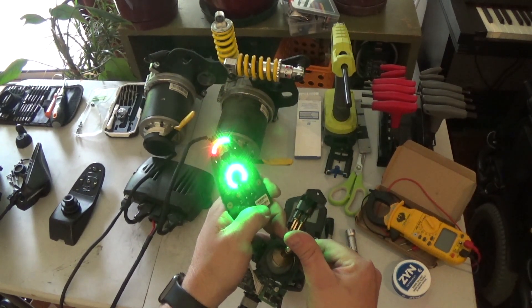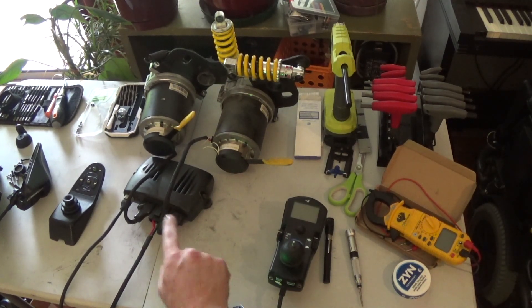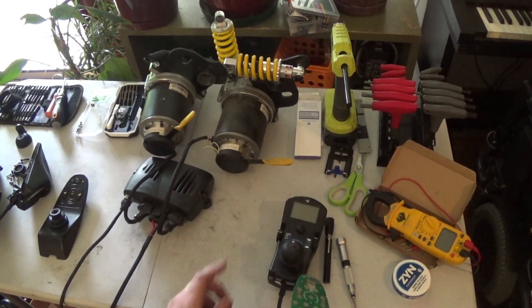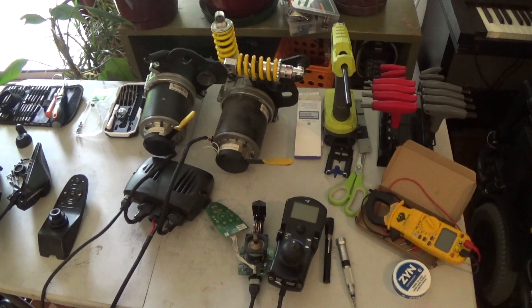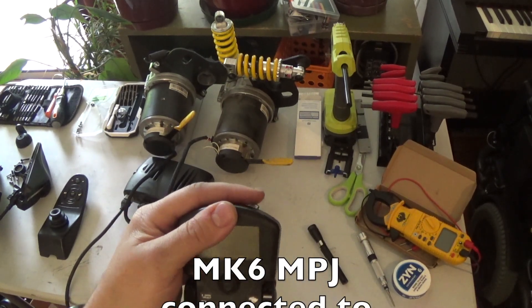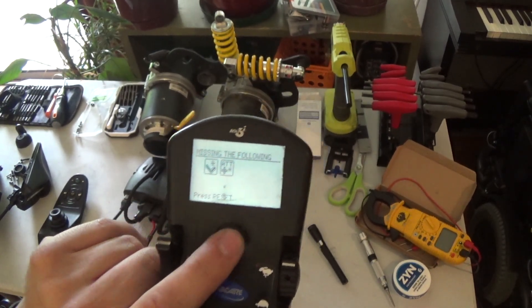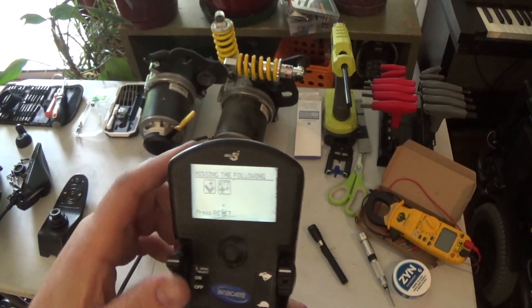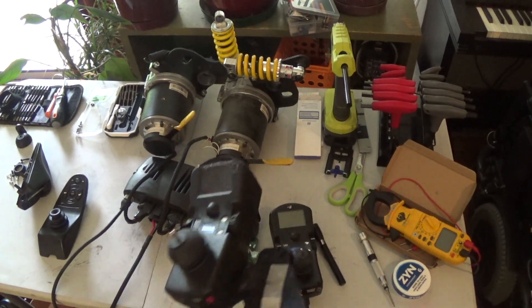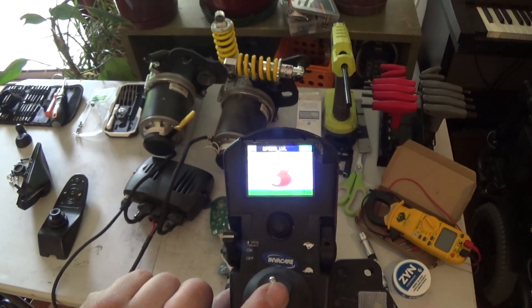It works! So the MK6 controller without accessories will work with the MK5 Shark-style joystick. Next, the grayscale MK6 MPJ — this one won't work. It looks like the grayscale ones, when they want a reset button press, that doesn't work. Last one to try: MK6 MPJC — C for color. Reset works, warning clears, says ready to drive, and it drives.